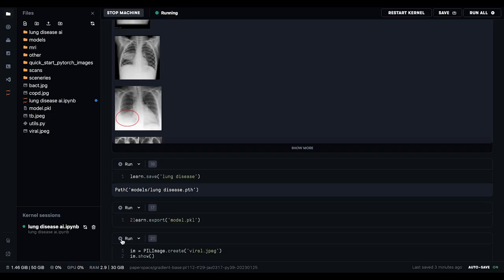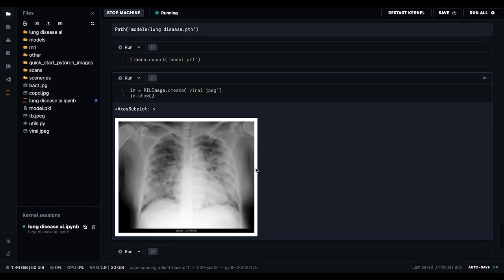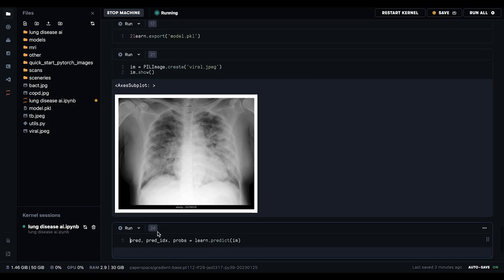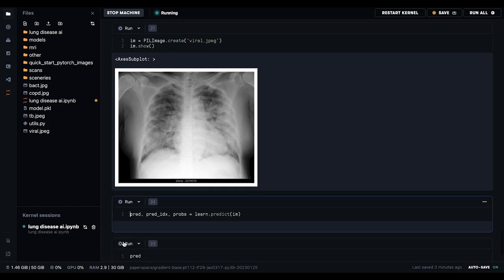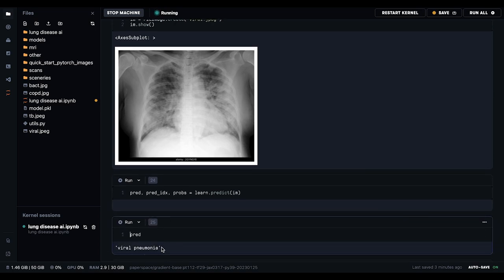Now, this is our upload. I'm going to upload an image I've just taken off the internet randomly of viral pneumonia. This is the image. This is our diagnosis command, just building that here. Then we can predict it. And we've gotten viral pneumonia — our correct diagnosis.